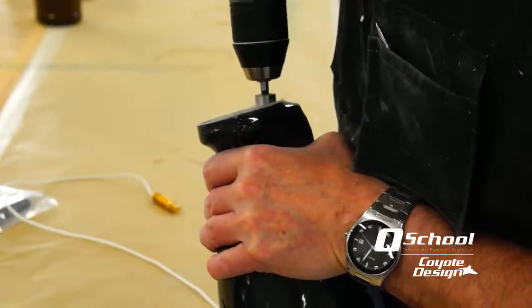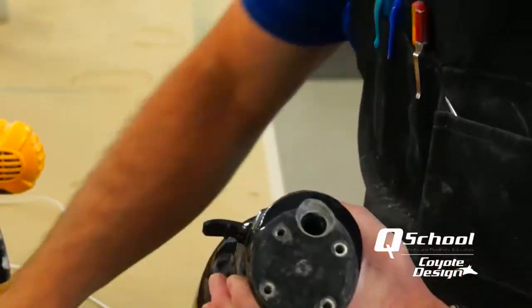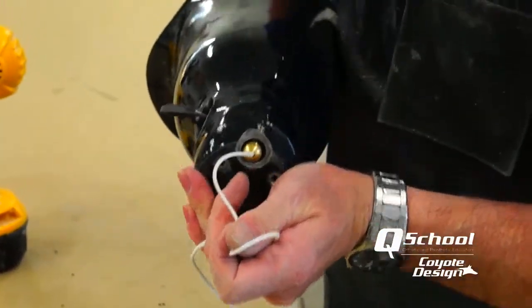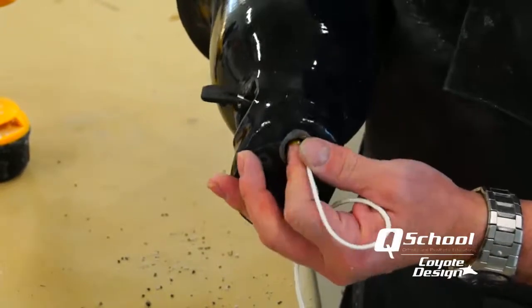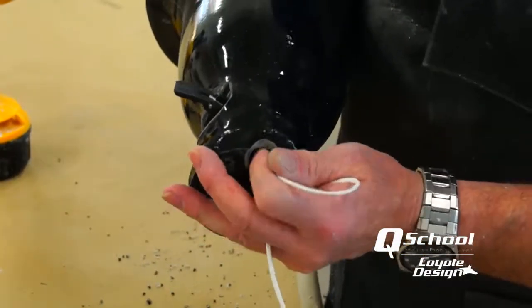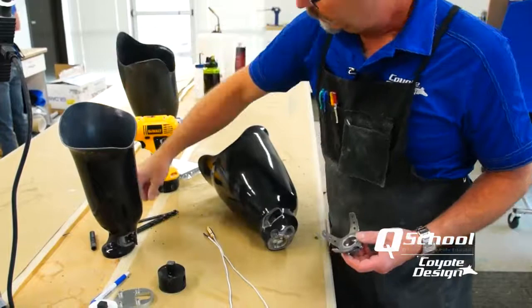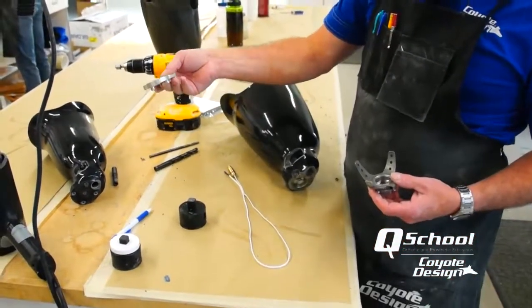The real key with the guide pin is so you don't bang around the edges of your lock. There we go — now we can easily pull through. Because you don't know on the depth where your lamination quits and what's going to be happening here; the person's pin might just stick out a little ways past it. It's always good to make sure you can easily slide a pin through there. We were able to get our guide pin in there, use our quarter-inch drill, punch through it, and then use a countersink to get to it. That one was set up on our five-degree offset plate.